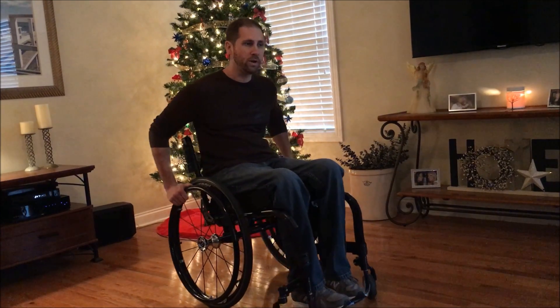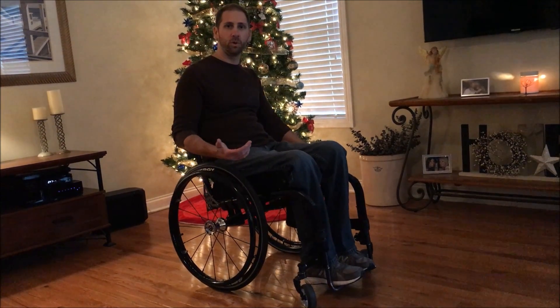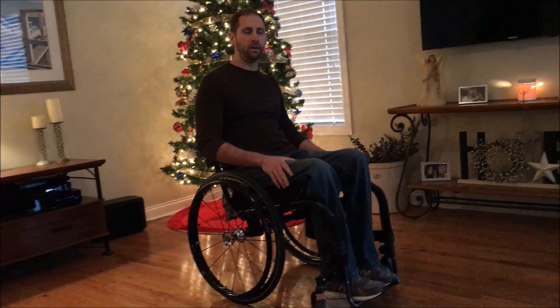The whole idea of having a wheelchair without anti-tip bars — one of the biggest skills you need to learn is how to jump a curb. I've talked about that in some previous videos, so go back and check those out. I talked about how to practice a wheelie and how to practice jumping a curb. That's going to be extremely helpful as you move on because you're going to have obstacles where there's not a ramp always in place.